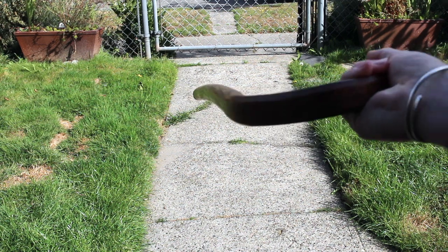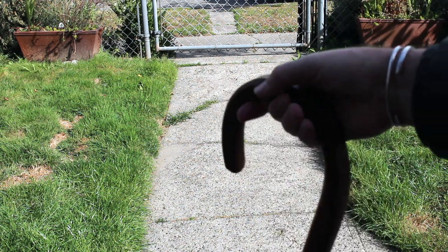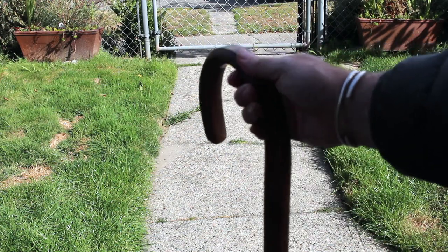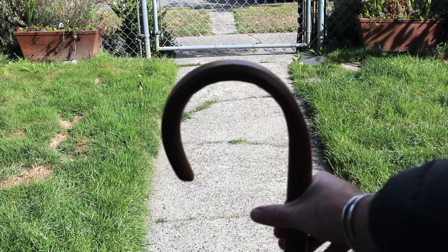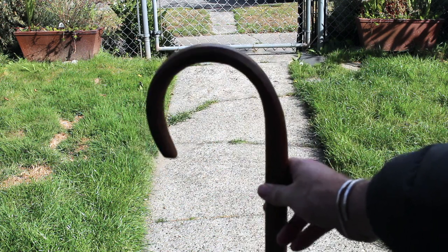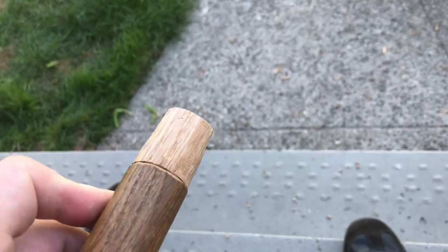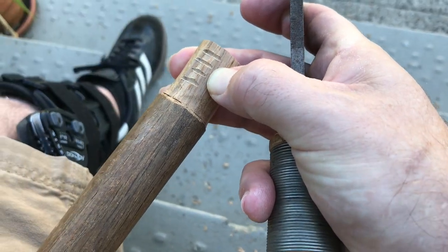I never trimmed it and I probably should have, so I'm going to take this opportunity. It's got a little bend in it — it's not the high end of the cane world. I'm sure it was bought around 1980 or 1981, God forbid at Walmart, but somewhere like that. It's solid oak, it was his, and it's stood the test of time. I guess now it's time to make it my own — and maybe my grandchildren, great-grandchildren, somebody, when they do something stupid, will get to use it. This is front porch work you can do in a couple hours with just some simple hand tools.